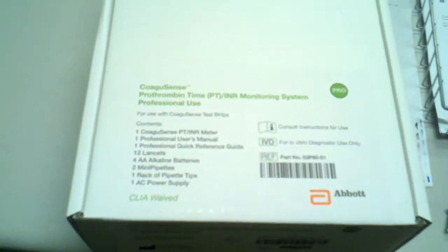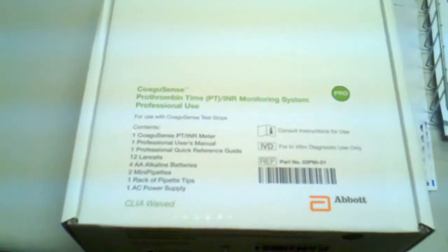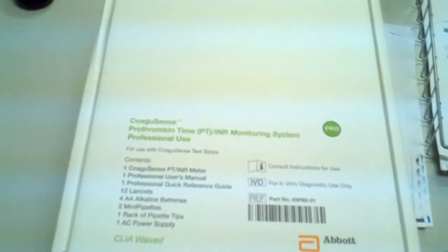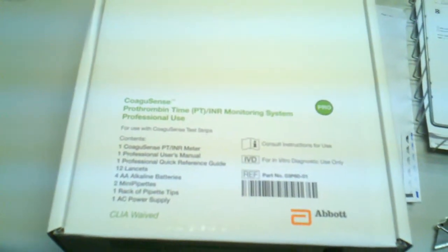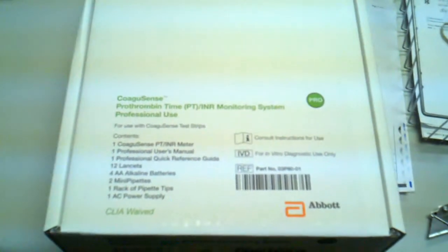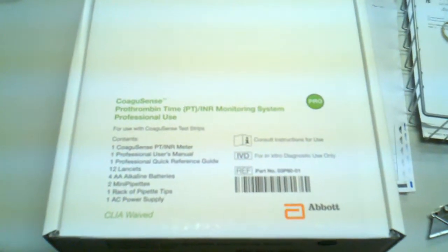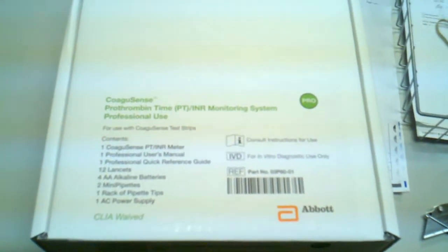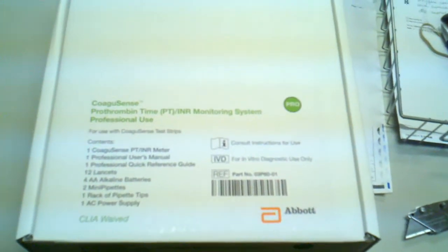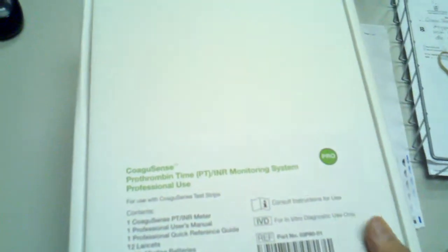We are very excited to offer you this product. We do have a demonstration on our website of this particular product so you can see how it works. This is just a tutorial showing you what exactly you get, and when you order it from GoSouthernMD this is the package that is going to arrive to your door.